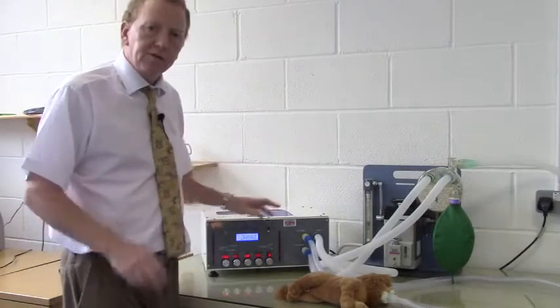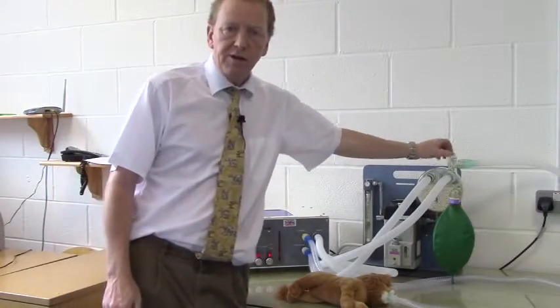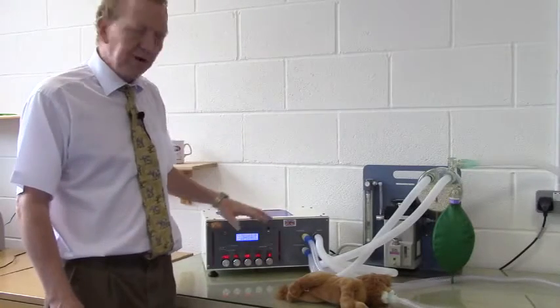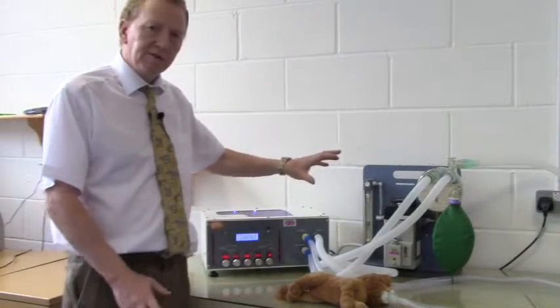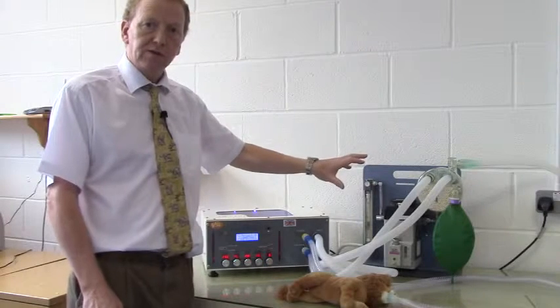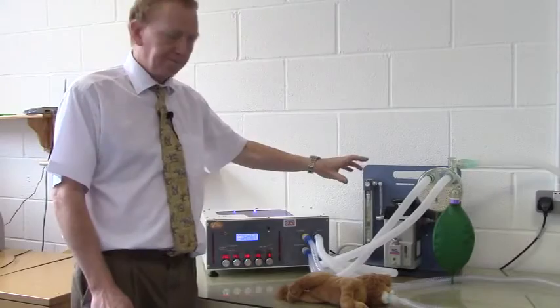The configuration for this rebreathing circuit has been covered elsewhere in previous videos, so I'm not going to go into that today, but I have got it configured as a rebreathing circuit using the soda lime and a rebreathing bag. And as mentioned in those previous videos, this rebreathing bag is on the inspiratory side of the circuit where it must be to support the use and the function of Merlin.